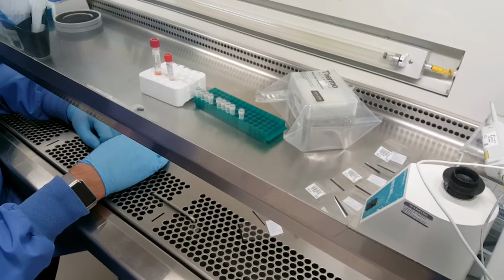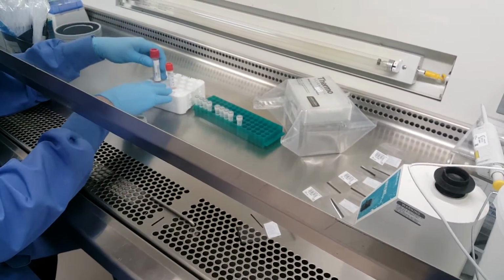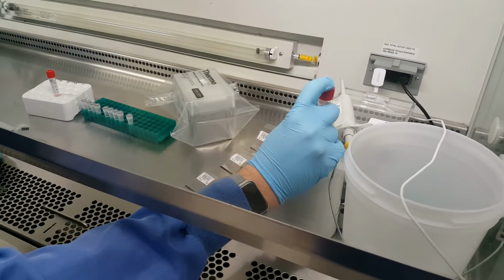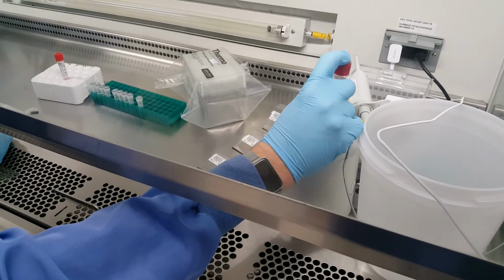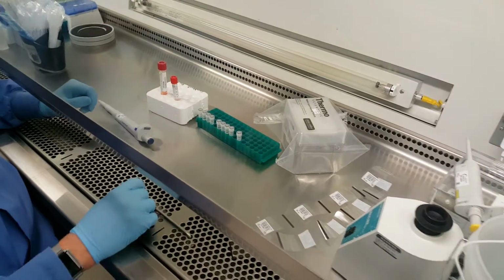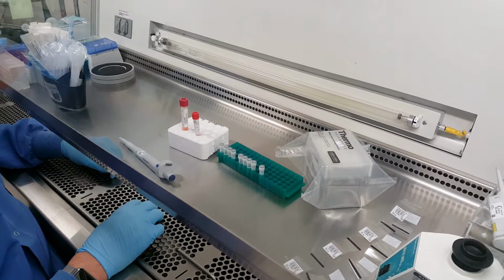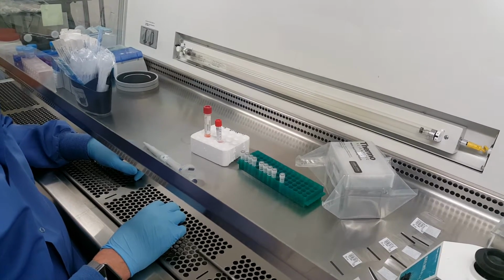As you begin the process, you need to vortex the specimen initially for 10 to 15 seconds, and make sure that you keep it as straight as possible. Once you've completed the vortexing, the primary tube needs to stand up for approximately a minute. Now at this point, you can see that Jack has placed it in a styrofoam rack.